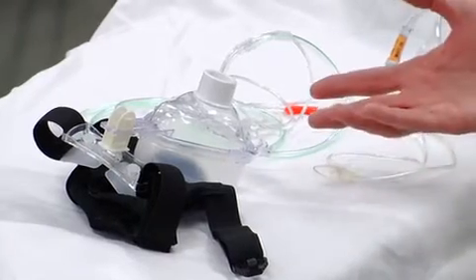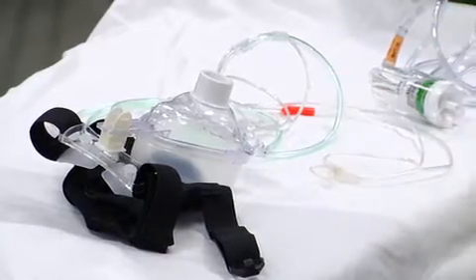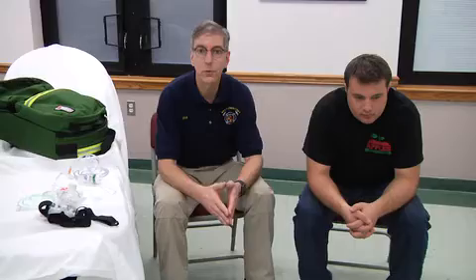CPAP now has disposable devices from many different manufacturers, so it's much more accessible. We know that we could save a lot of lives with CPAP. The application of CPAP, though, requires some pre-planning, some thought, and probably some training so that you actually can do it effectively when it's necessary to apply.